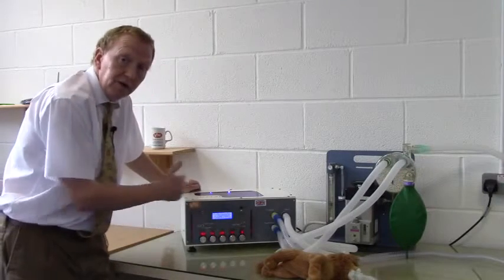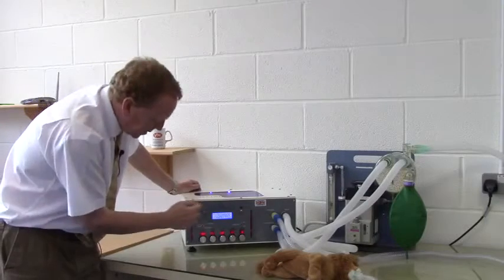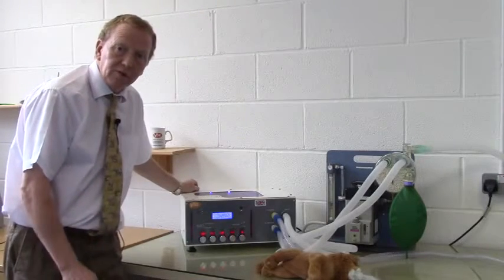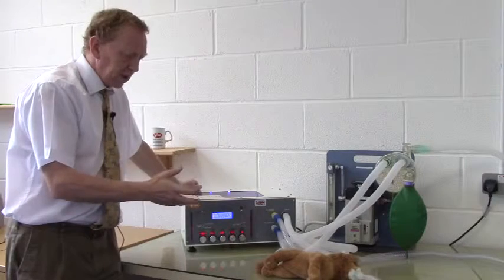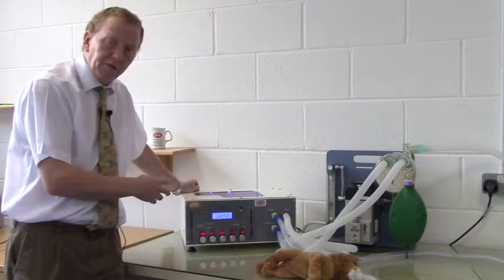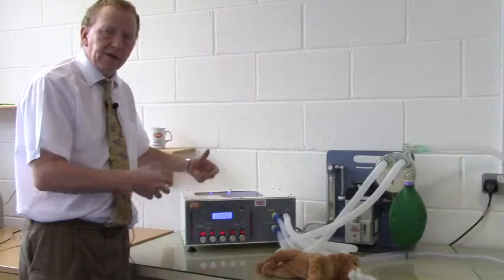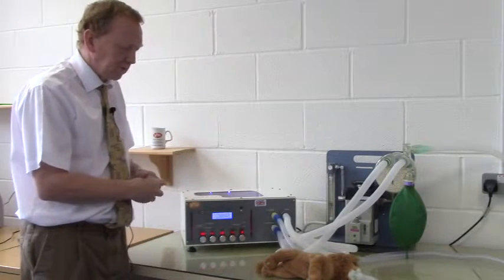In addition, Merlin knows very accurately how much volume has been delivered and can measure it and display it on the screen. And here we see that the tidal volume is 152 mils. So we've achieved exactly the same ventilation performance, pressure cycling, as we did when we were volume cycling. And so you may say, well, why would I do that? They're exactly the same. It's a lot easier to volume cycle. I can calculate volumes easily. Why would I pressure cycle?